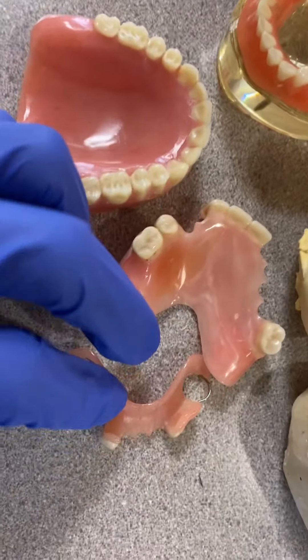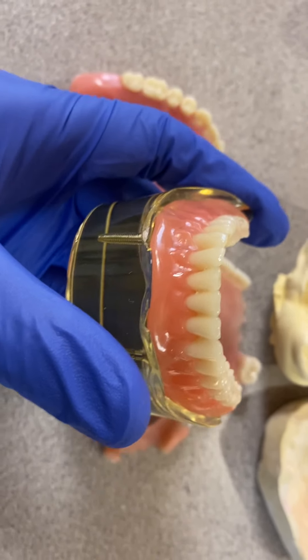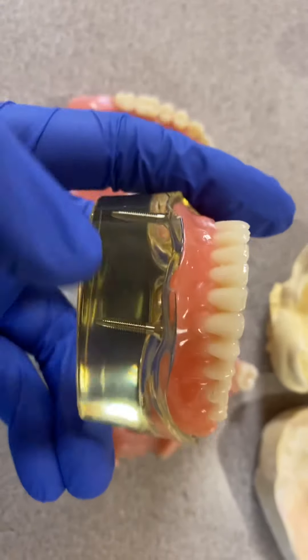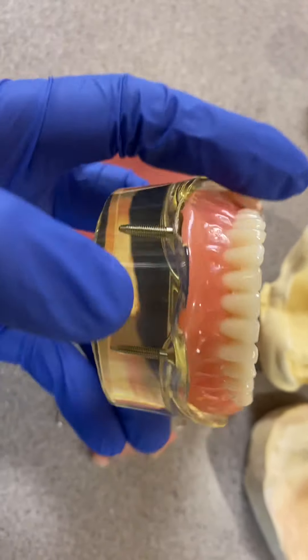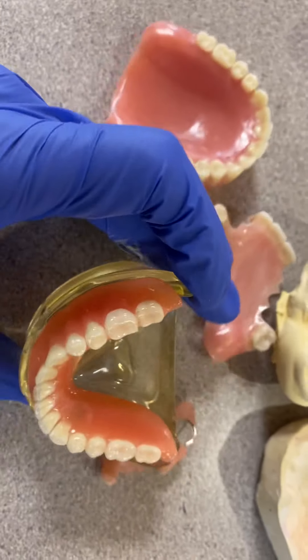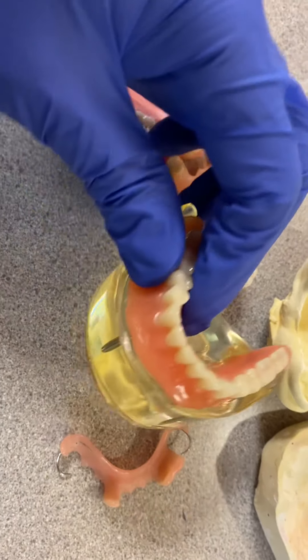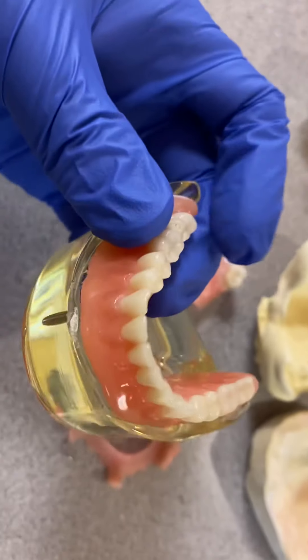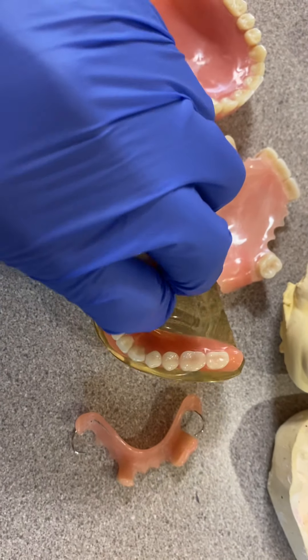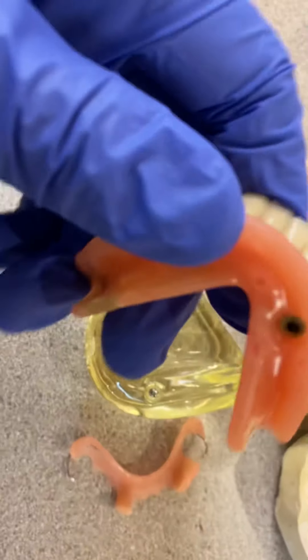Then you've heard people say implant over denture. This is a model: those two implants down here are placed by the surgeon or dentist, and then the denture sits on top. The implant has an attachment that retains the denture from coming loose. I'm going to try to take this out with one hand — here we go.